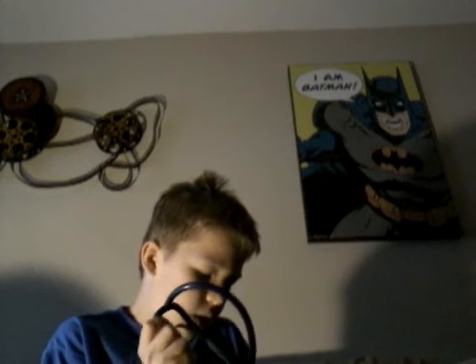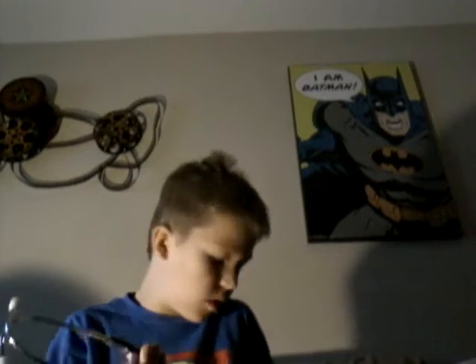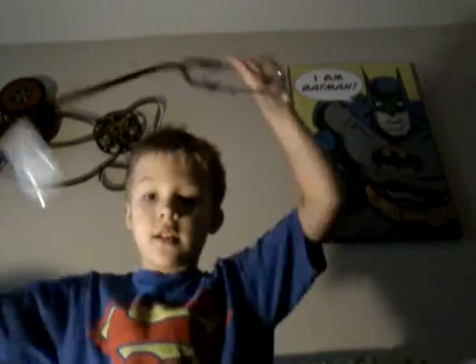It did come with something to make it pediatric, but I'm not going to use the pediatric thing because it's a waste of time going downstairs to get it. I can't remember the brand, but it's a nice stethoscope. I got it with the blood pressure cuff — it just goes around like this, or like this.